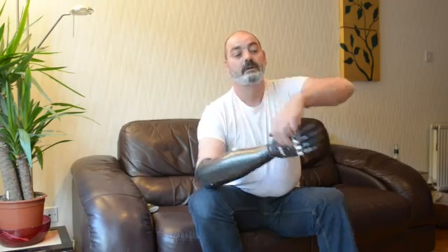I can move the thumb to give me point grips. I can use it, I can tie it, and it has a wrist on it. This is all controlled purely by two muscles, one on the outside and one on the inside of the arm.